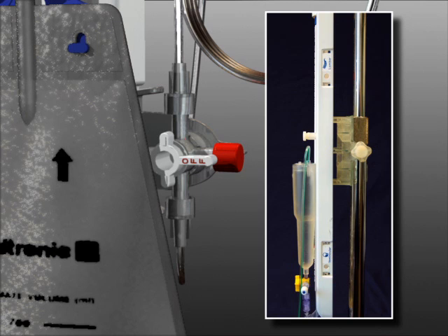For lumbar drainage, attach the main system stopcock into the upper location denoted by the picture of a lumbar spine and the word lumbar.